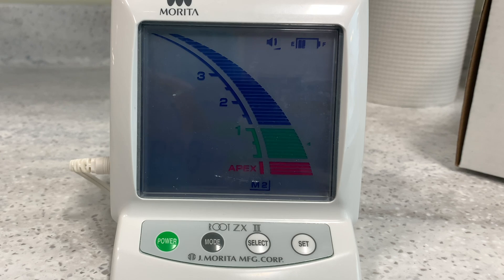Have you been suffering from this problem? Let me show you some of the tips and tricks that I've learned to try to solve this problem. Make your endos so much smoother.